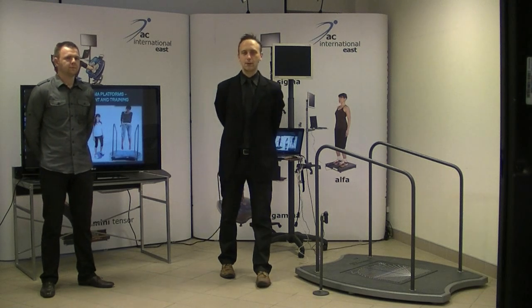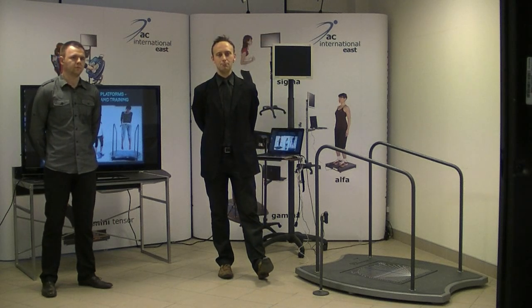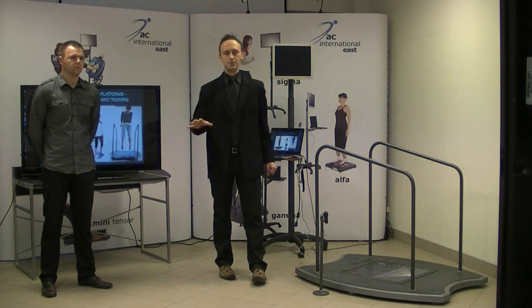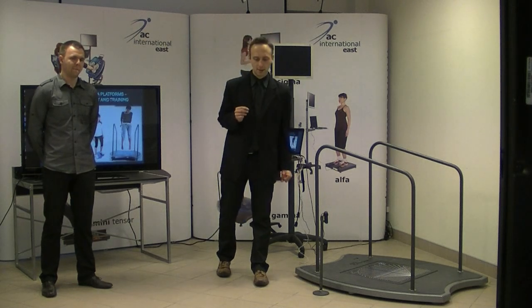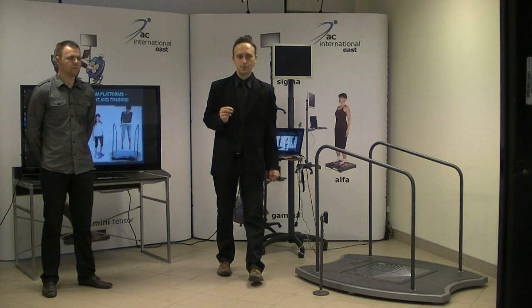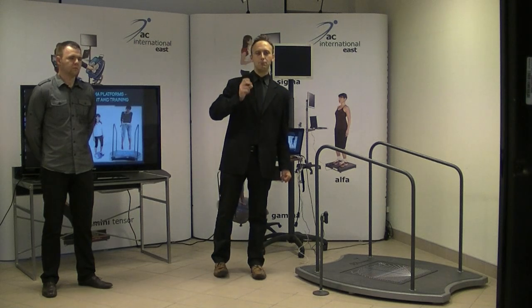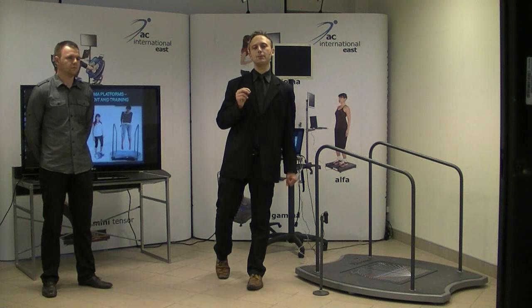So first of all, there is a question: why do we use the assessment and the training of the human balance? Balance is one of the most important aspects in the rehabilitation process, especially for the evaluation and training of the neuromuscular coordination, also for the weight distribution and balance. Nowadays, we use some modern platforms which are designed for the assessment of the balance and the proprioception, and they are intended for use in the following rehabilitation.